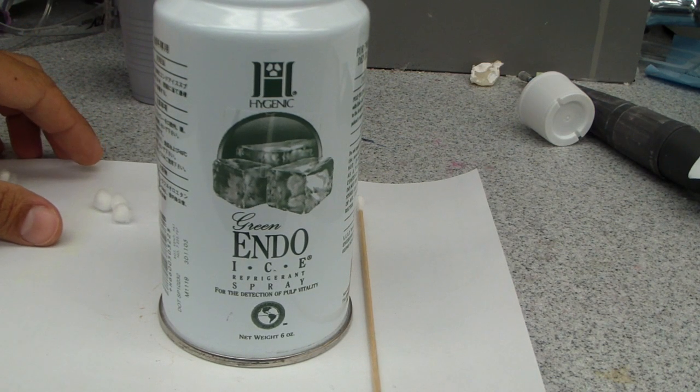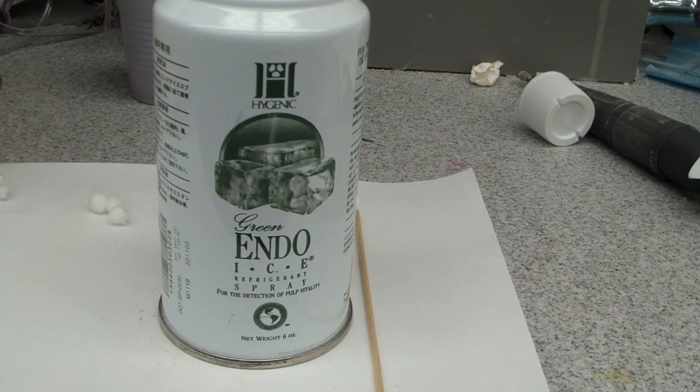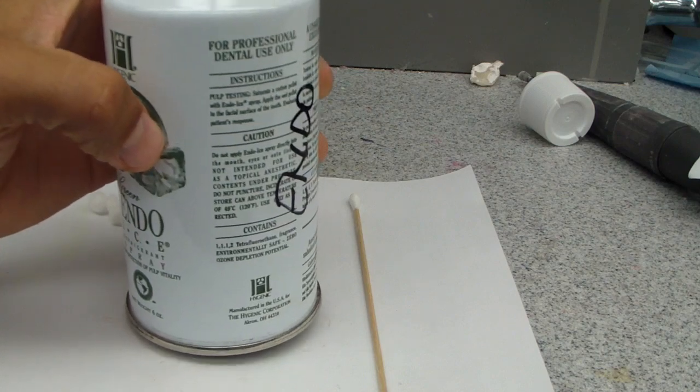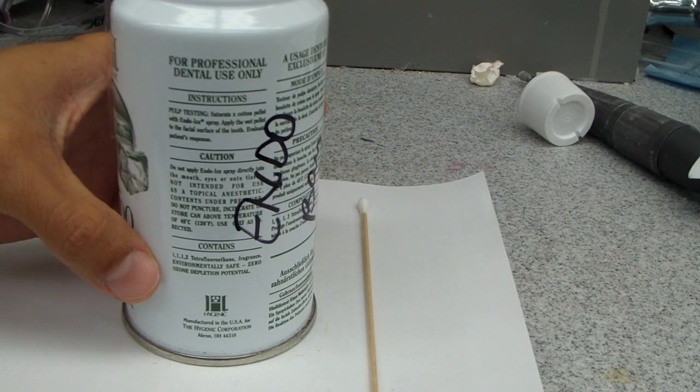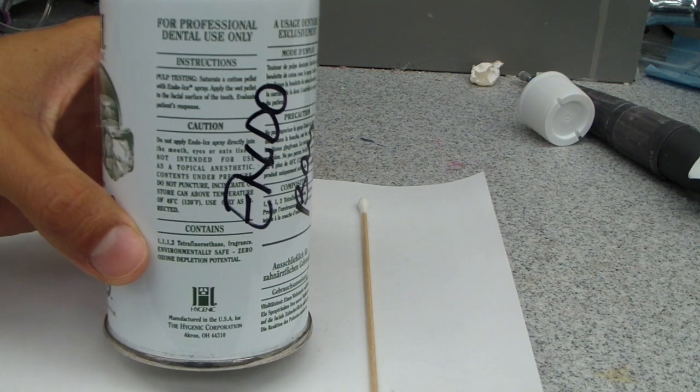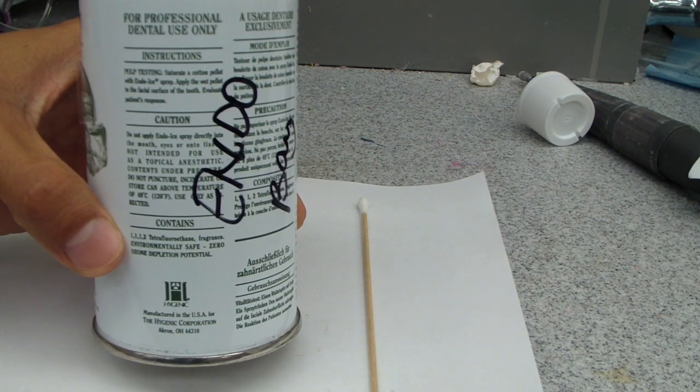One of the tips that we learned in the residency was use of one of our thermal sensitivity tests, which is using cold. In the residency we use, and pretty much everywhere I've worked, endo-ice. It was changed over the last few years, and now it is actually 1,1,1,2-Tetrafluoroethane and Fragrance.